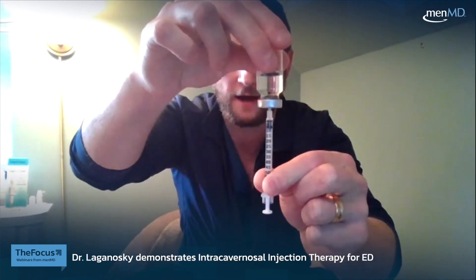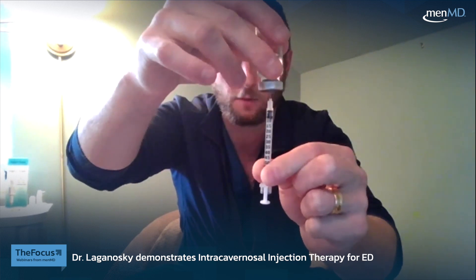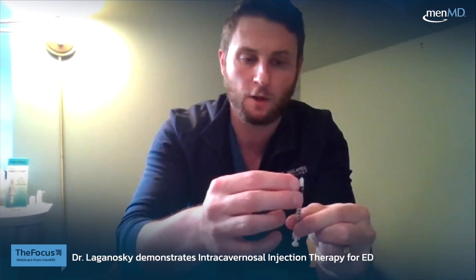I'm going to show you what the syringe looks like when we draw out the medication. I want you to pay attention to the black area at the top of the syringe — you'll notice it's all the way up at the top. I puncture into the gray area and draw out the medication. When I draw up the liquid, the top part of the plunger is where the liquid fills to. If I wanted 10 units, I would simply pull the plunger down until I reach 10.